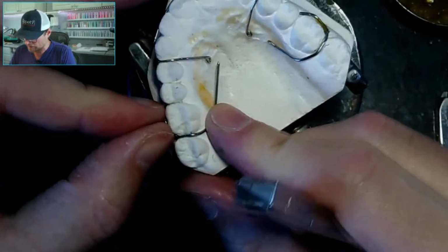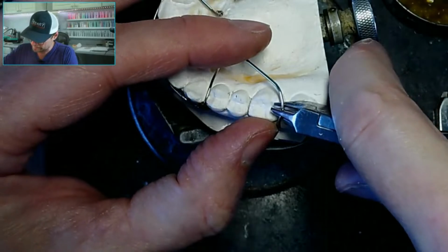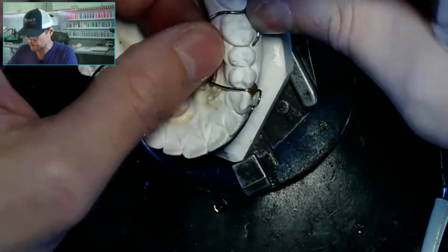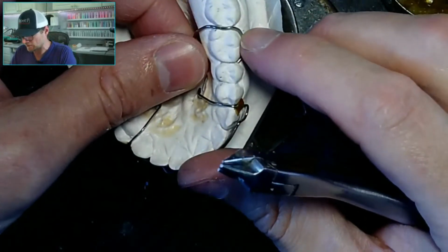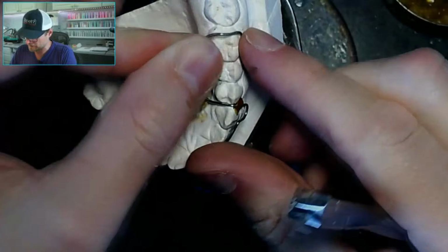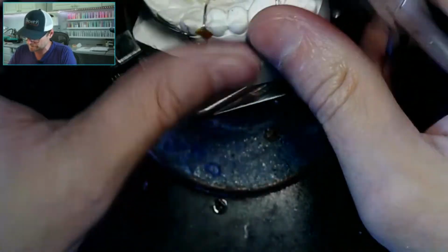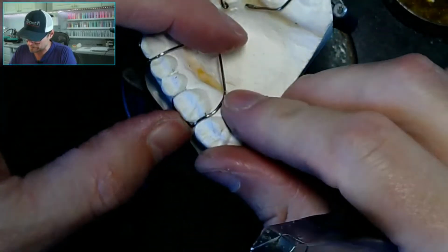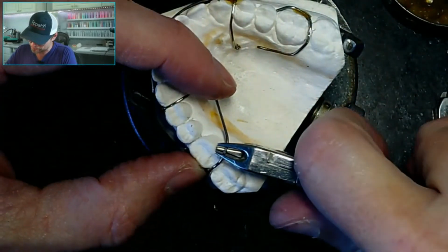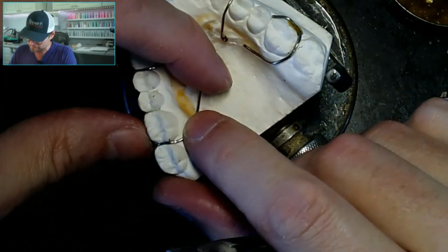Like I said, when I was starting this, I probably should have duplicated it, but I ran out of time. And I hate duplicating, because it reminds me of taking impressions, and I don't like taking impressions, and that's why I work in the lab, and I'm not a dental assistant anymore. Dental Things knows about that. I'm sure his students take tons of impressions on each other all the time. Alginate, PVS, all that stuff.